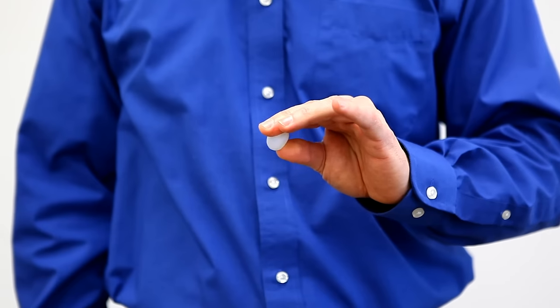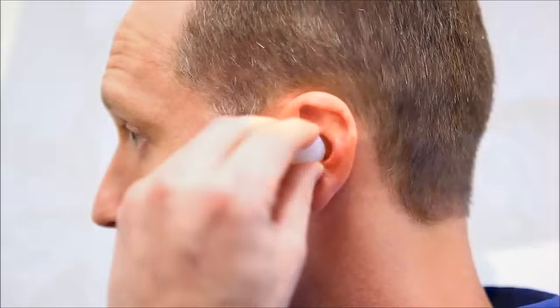You just take it, roll it into a ball, and place it over the outer ear canal, avoiding any hair.